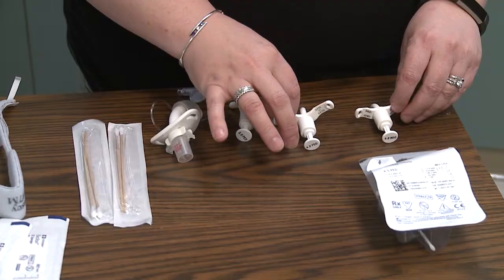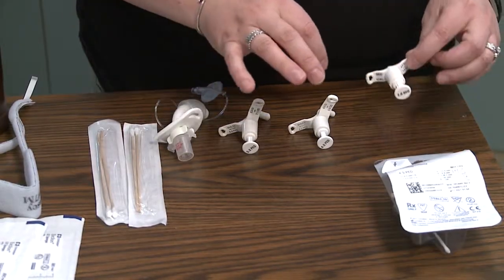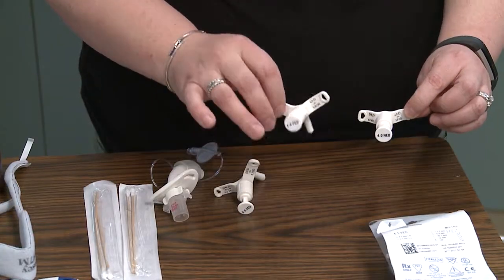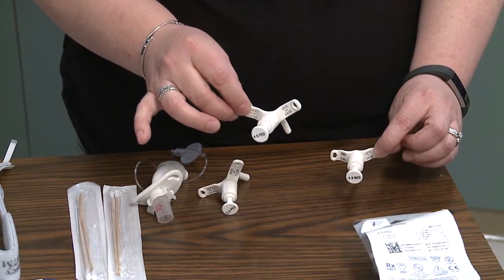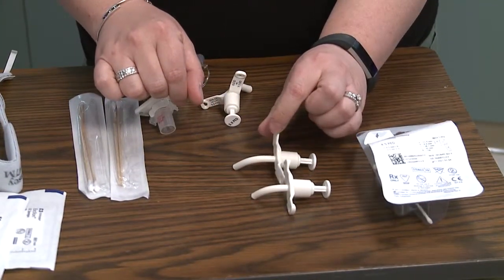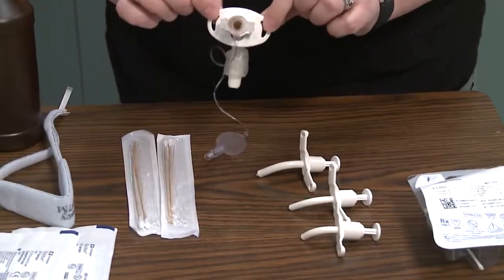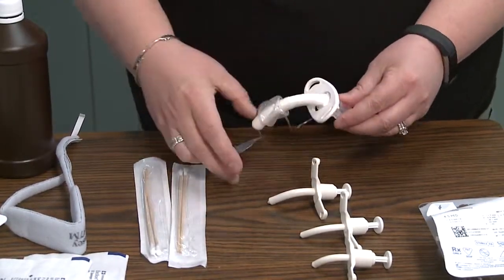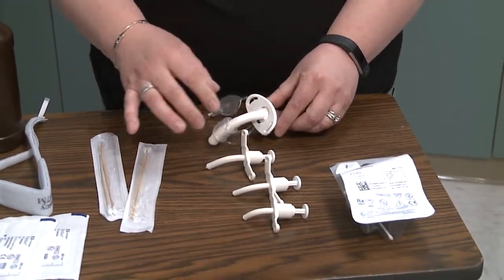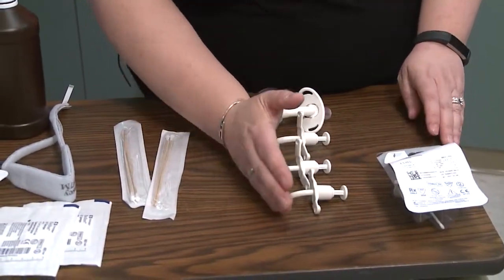When taking care of a patient with a tracheostomy, you may have different size trachs that you would be dealing with. For instance, this is a number four neonatal tracheostomy. This is a number four pediatric tracheostomy tube. As you can see, the length is very different between the two. Here's a number five pediatric trach. Here's a number six pediatric trach, and the difference with this one is that there is a cuff on the end of it and it has a disposable inner cannula.